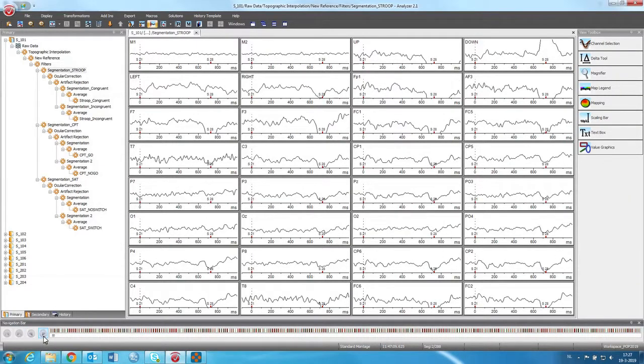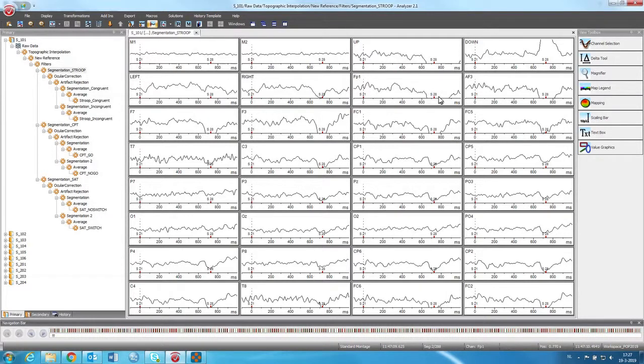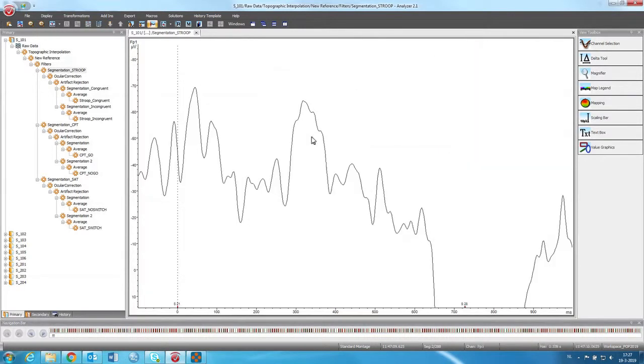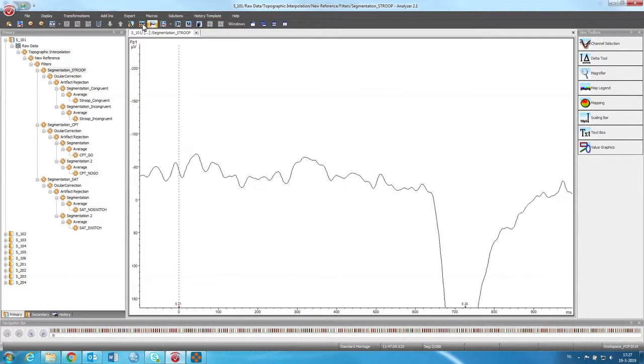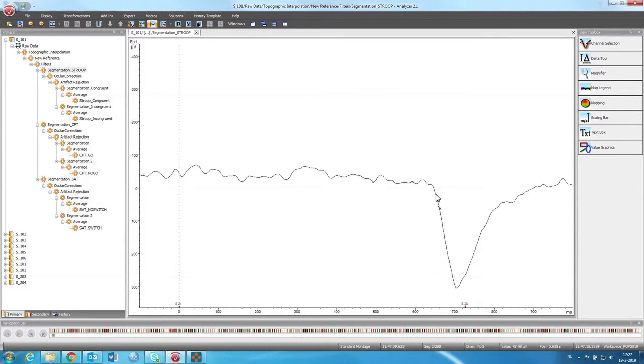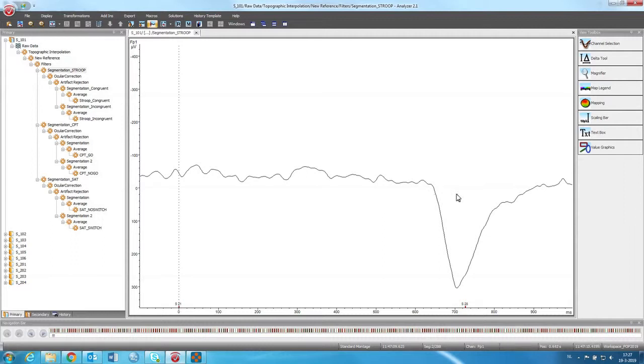So for the next step, I will select this electrode. Because here you can clearly see that there is an eye blink. So the eye blink electrodes show that there is something happening. And if I click here, like this, here you can see a pretty clear eye blink that is definitely distorting this trial.